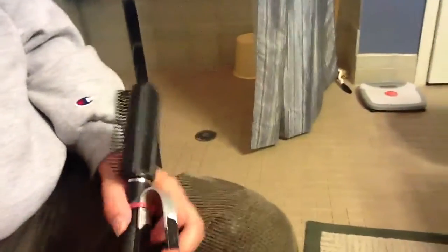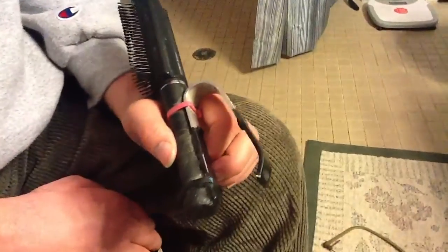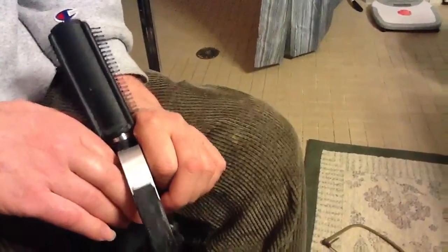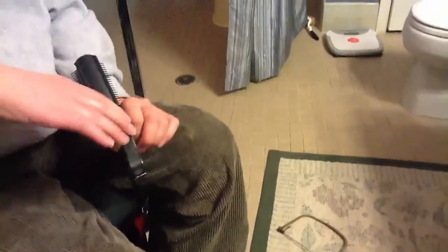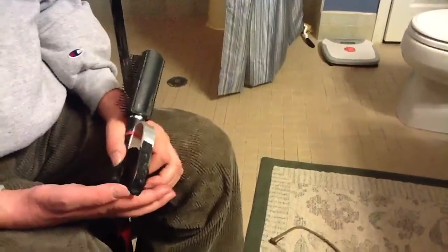This is my hairbrush. You can buy these bars at Home Depot, Lowe's, or hobby shops. They're aluminum, and they come in different thicknesses and different widths. This is one of the first ones I did, so it's a little heavier than the others, but you want it to be firm.